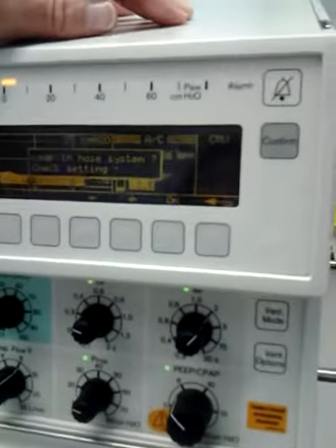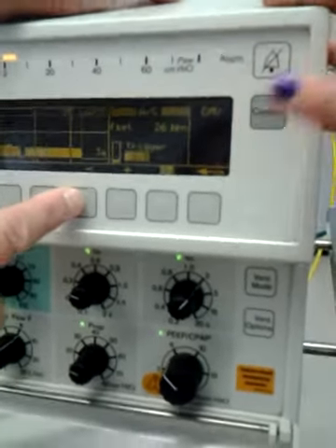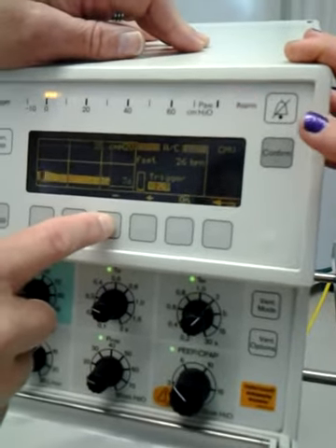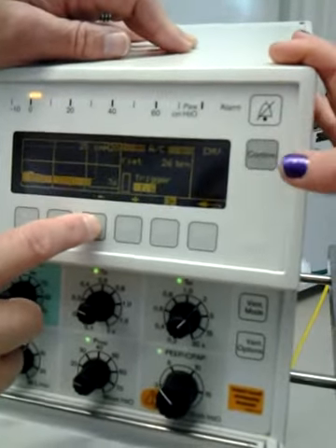So you use the plus and minuses to change your flows higher or lower. That's the only option, but you can only do it in assist control. I'm going to click on each one, but then it should stay.